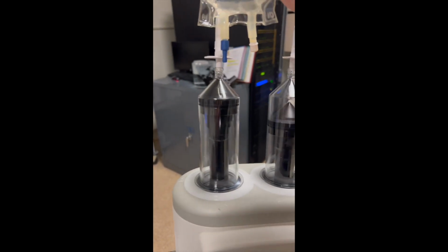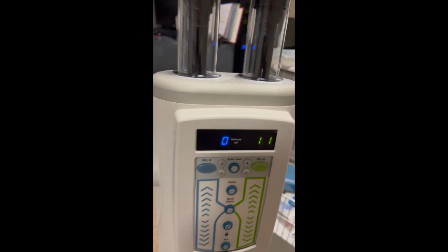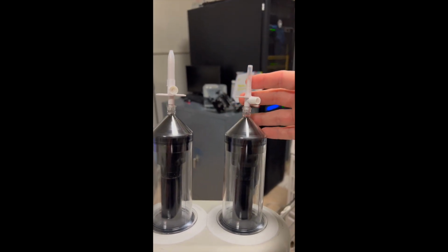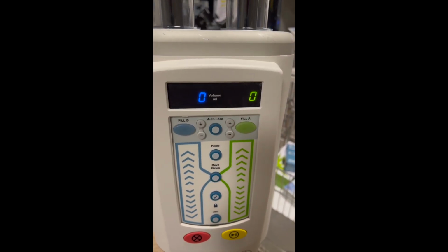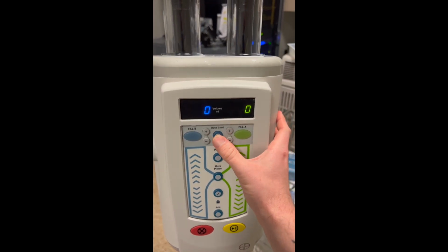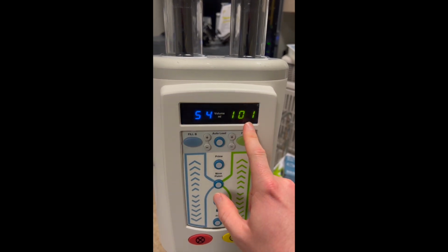So your saline's going to go to the blue one. Think of it like this: it's basically water, and water's blue. And then your contrast, you're just going to pop on top of here. And then you'll go ahead and get a preset. Now, if you set up on the terminal correctly, when you go to auto load, it should pop up with the exact numbers that you need.